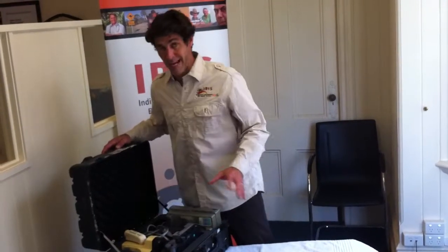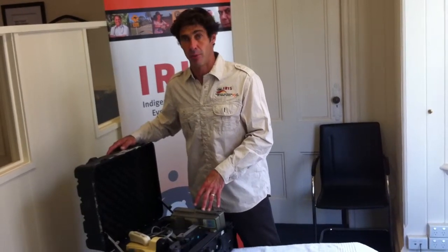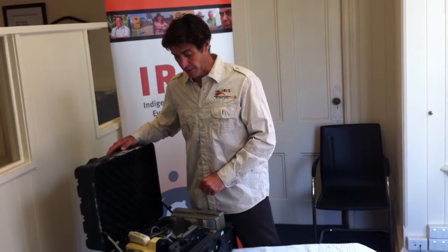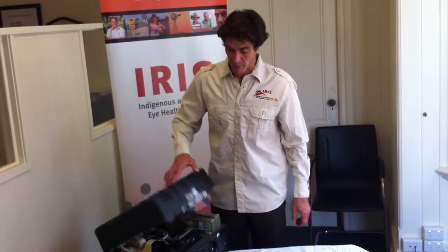The keratometer is accurate enough. We use this keratometry to do the cataract surgeries in Cape York, and it is accurate enough for that. I find it an invaluable help in the communities as we're working around, and it comes along with the kit as well.